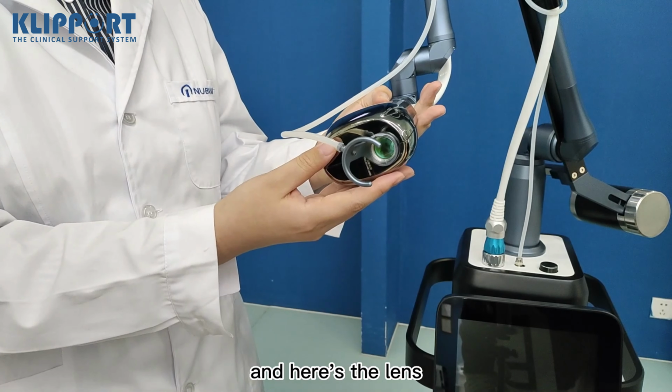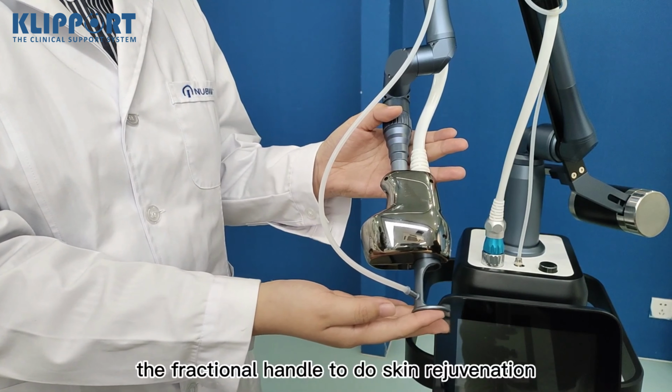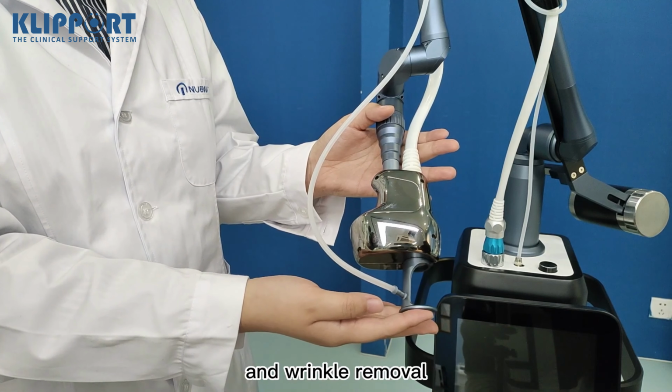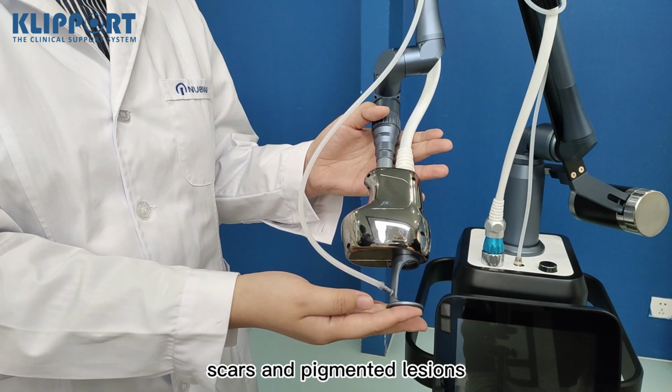and here's the lens. We can use the fractional handle to do skin rejuvenation and wrinkle removal. And we can also remove acne, scars, and pigmented lesions.